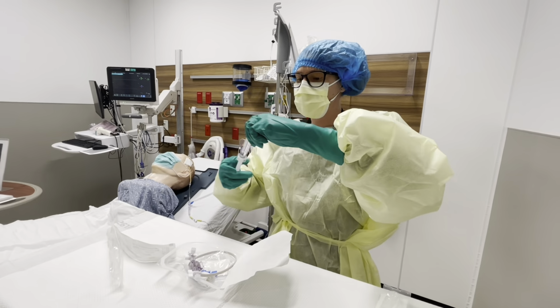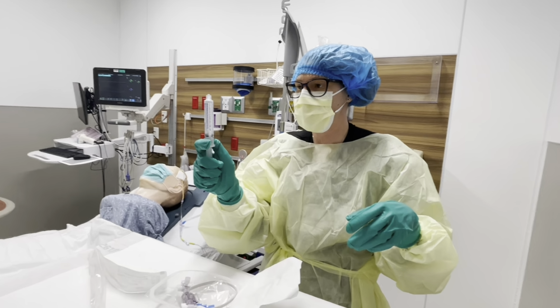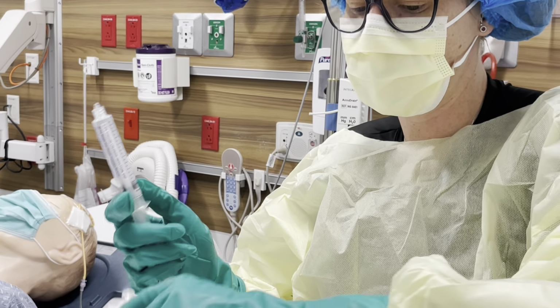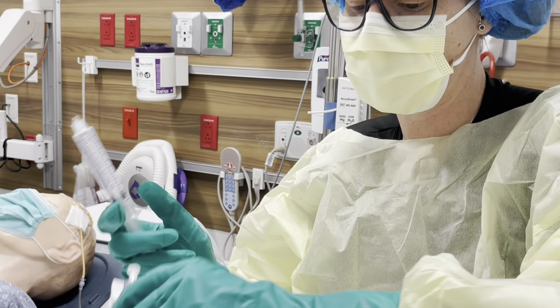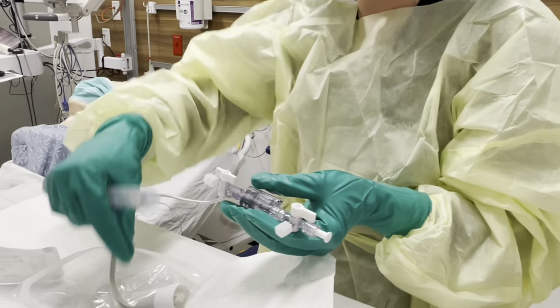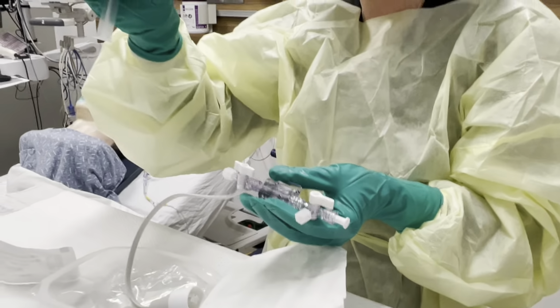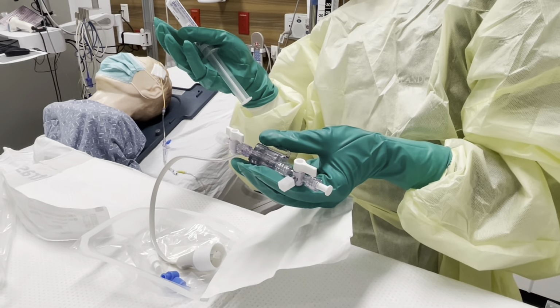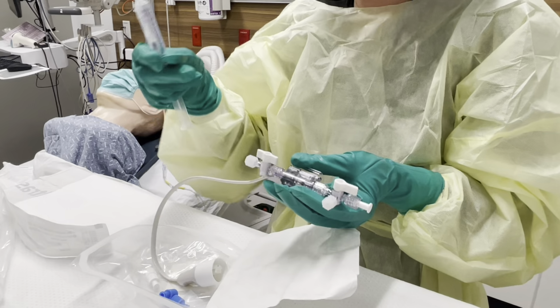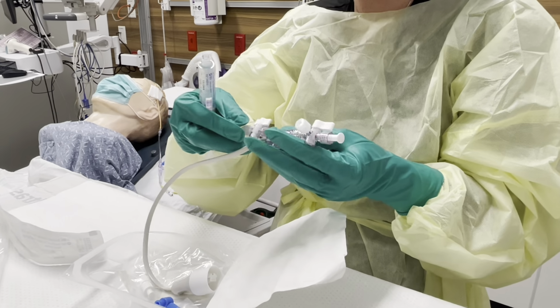So what you're gonna end up doing is, again, this is sterile. You wanna make sure that you're getting all the air out, all the little bubbles. Anytime you have air in your EVD line, it's gonna cause your ICP waveform not to be right, and then you're gonna end up having to troubleshoot it. The way that this comes out, it has a couple of different valves on it here. Pretty much anything on your EVD, you're gonna want these nice blue caps. If it doesn't have a blue cap, it's just best to change it to a blue cap. I don't think that there's really anywhere on the device that it isn't good to have a blue cap. For some reason, these are vented caps. They need to come with non-vented caps.